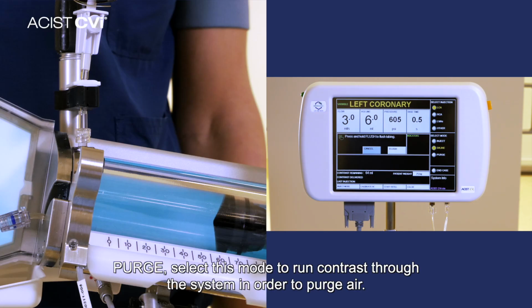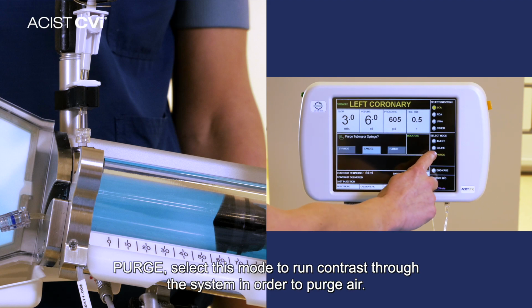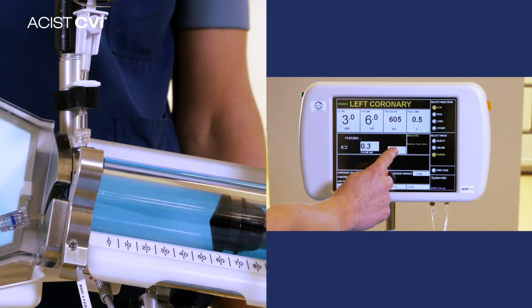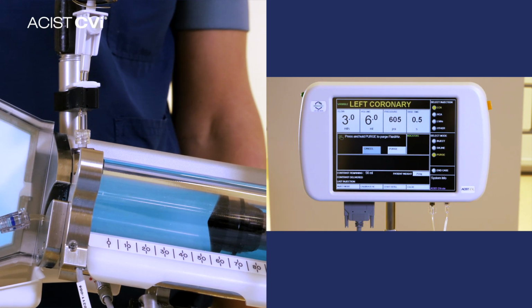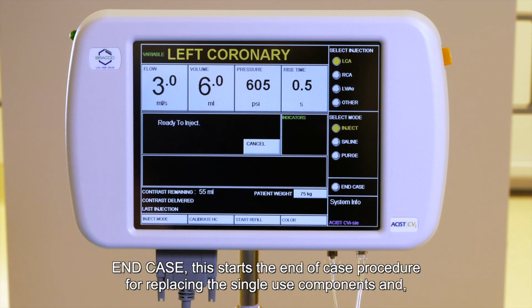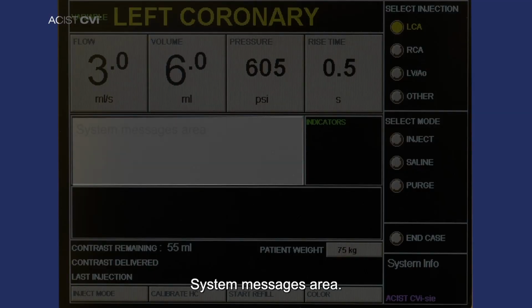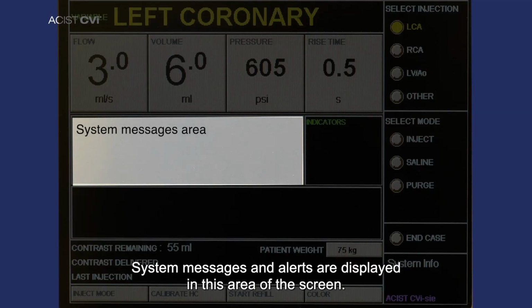Purge. Select this mode to run contrast through the system in order to purge air. End case. This starts the end of case procedure for replacing the single-use components and, if desired, shutting down the system. System messages area. System messages and alerts are displayed in this area of the screen.